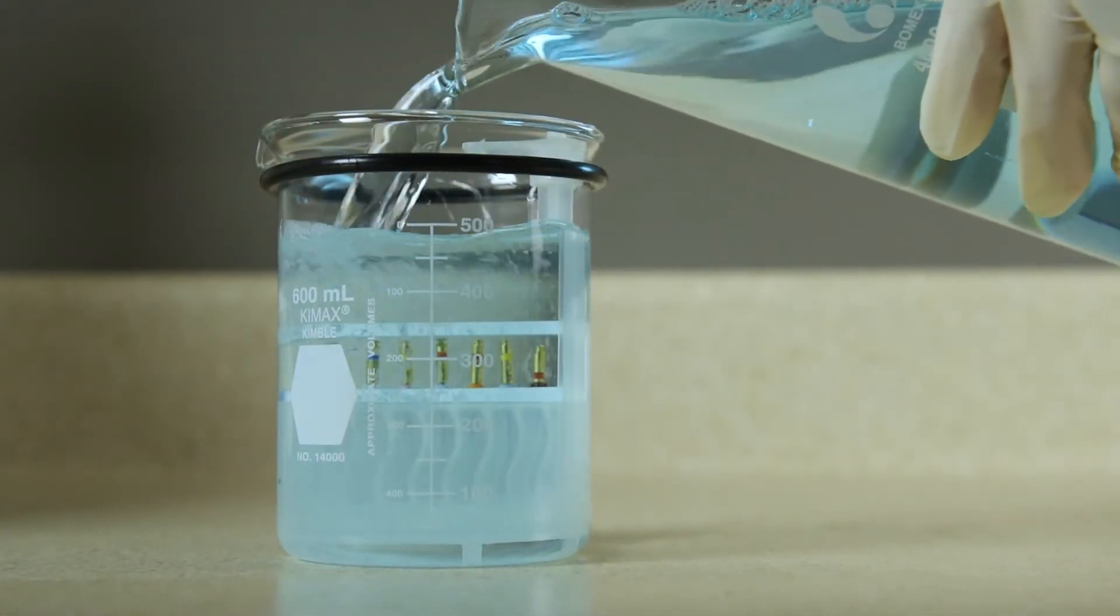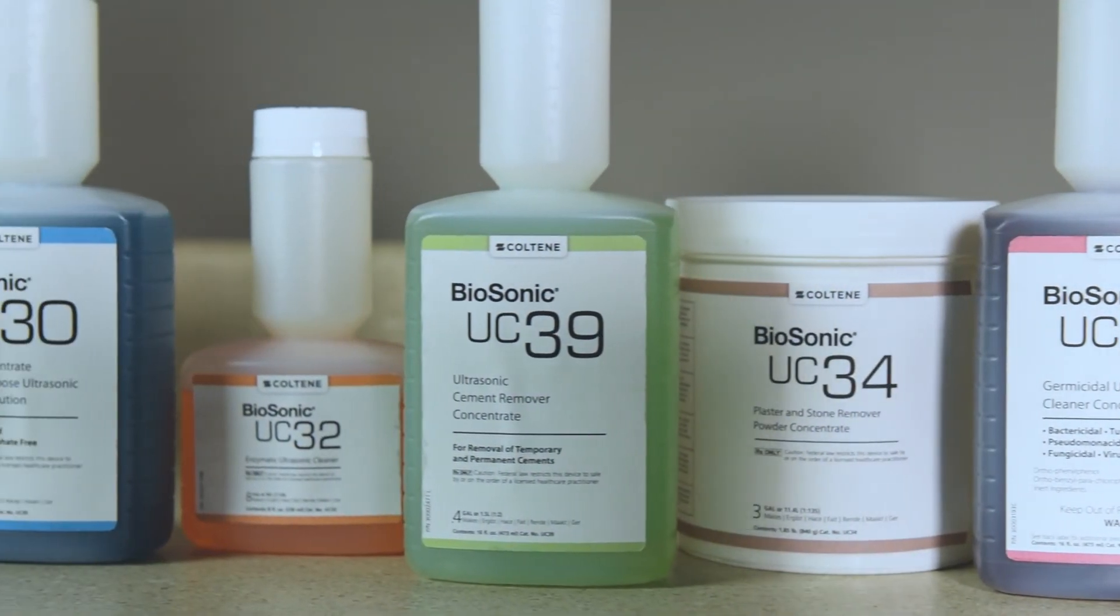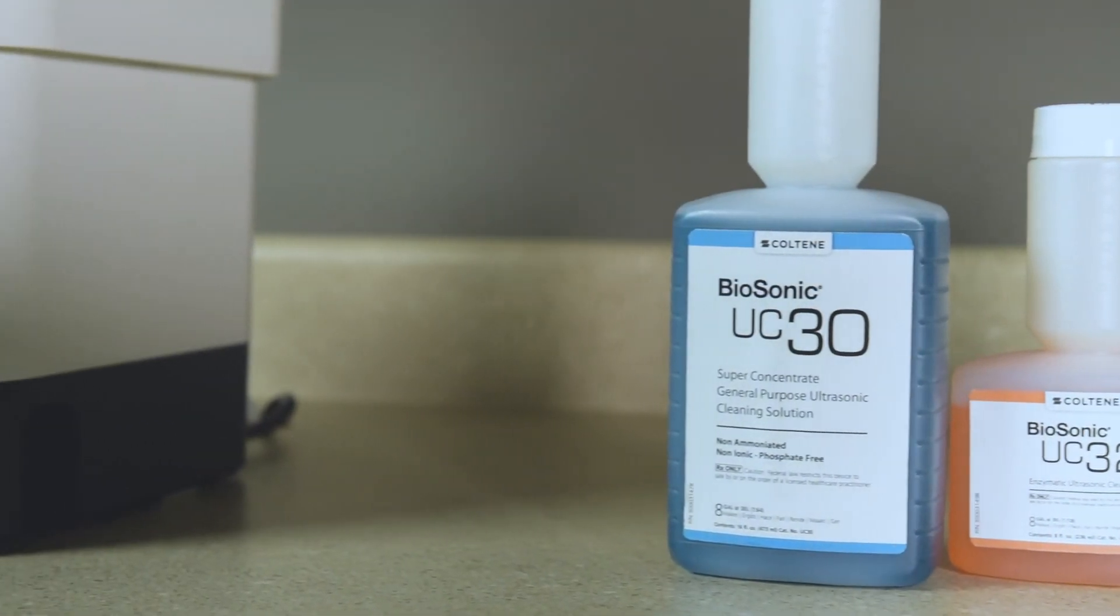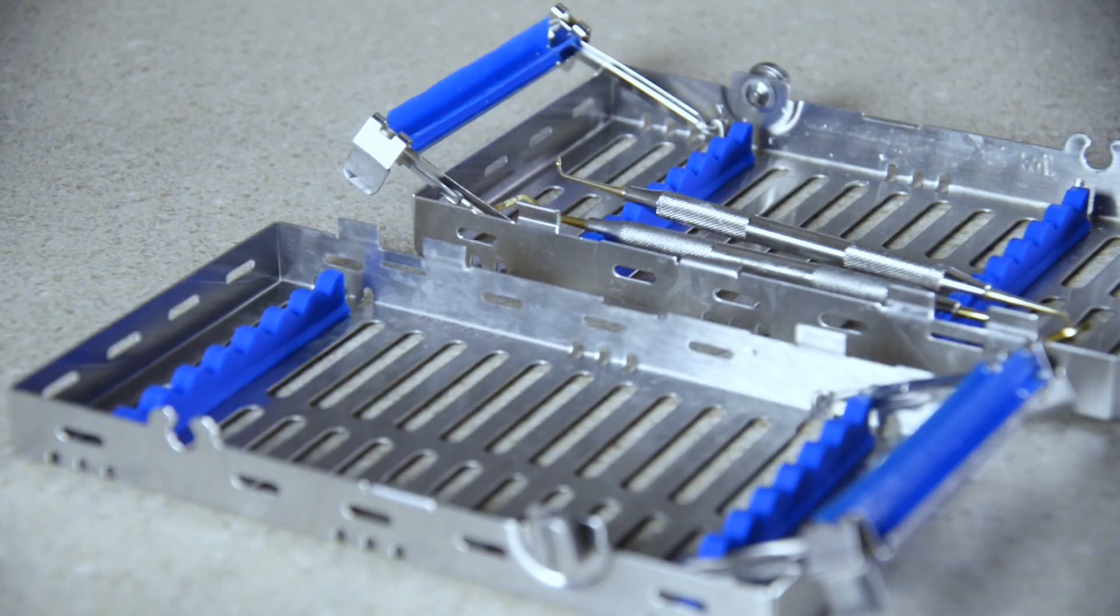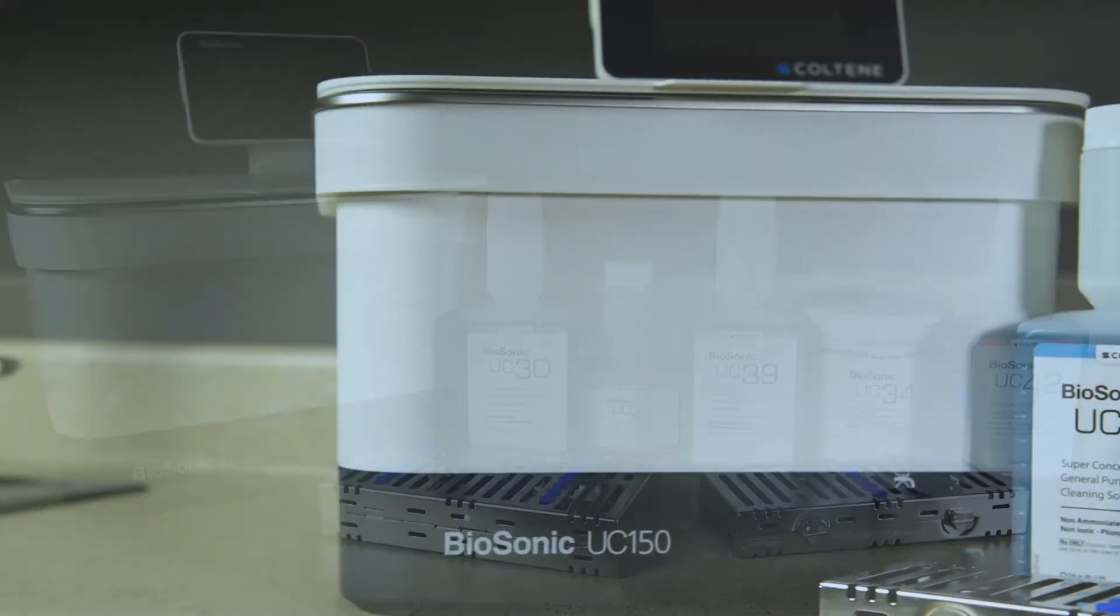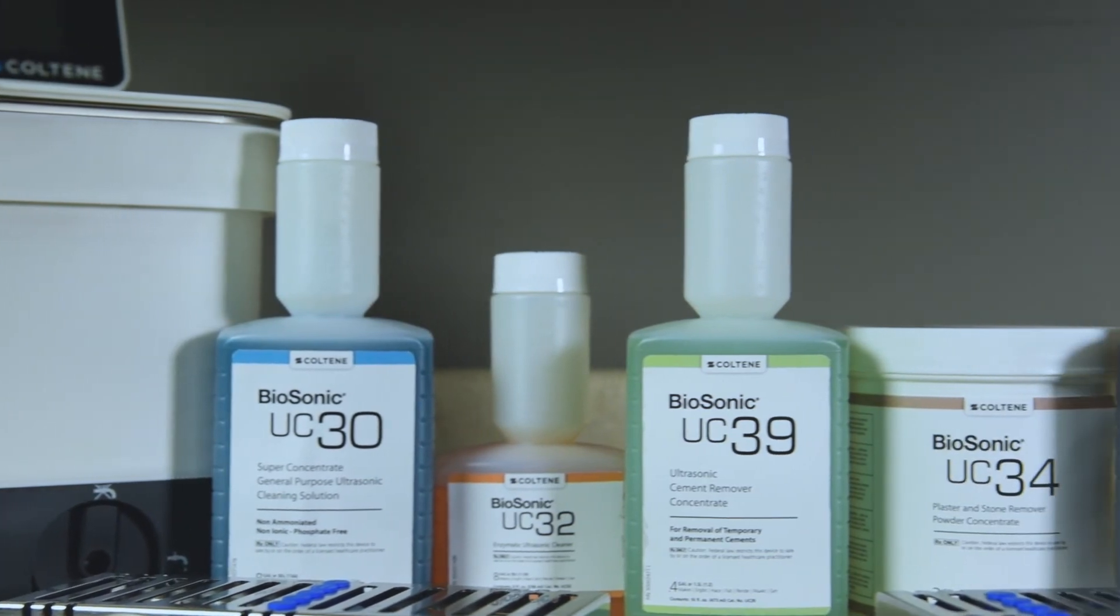Note that some solutions specifically require the use of a beaker. BioSonic offers a full line of cleaning solutions, which offer the flexibility to efficiently clean and disinfect instruments, prostheses and other items. It is recommended that BioSonic solutions be used with your BioSonic cleaner for consistent and effective performance.